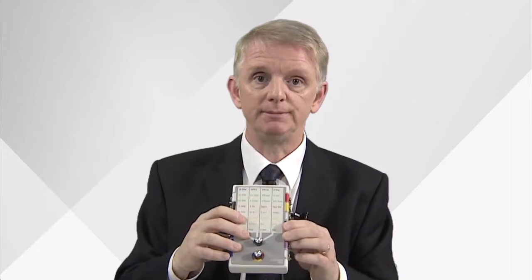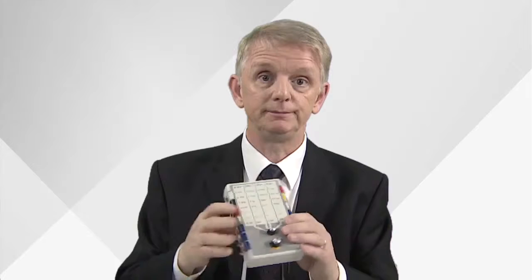But for the purposes of today's demonstration, I'm going to be using an ECG simulator. This isn't part of the kit.